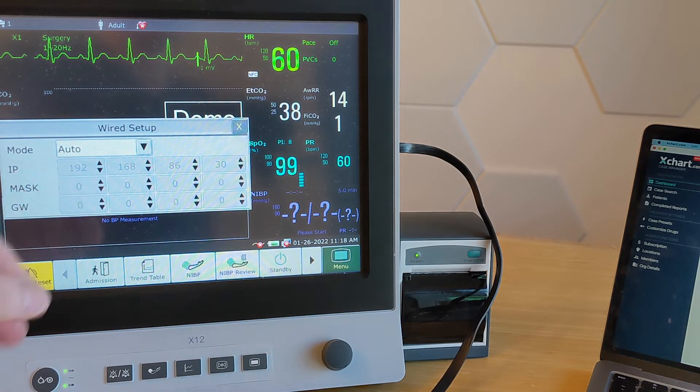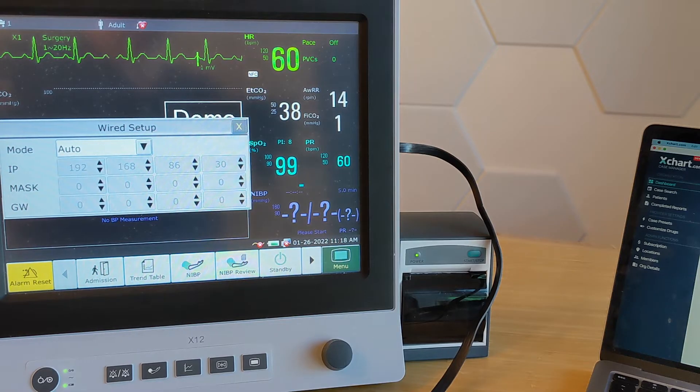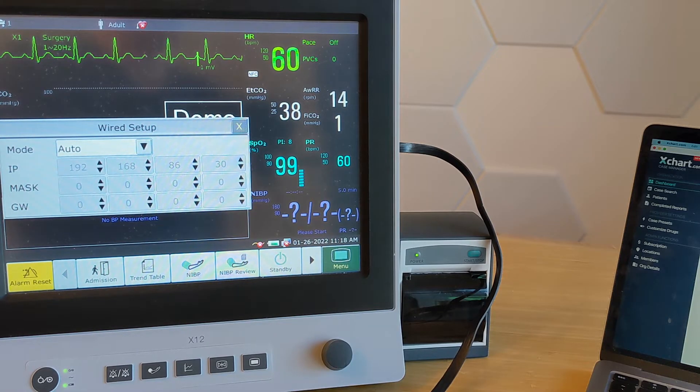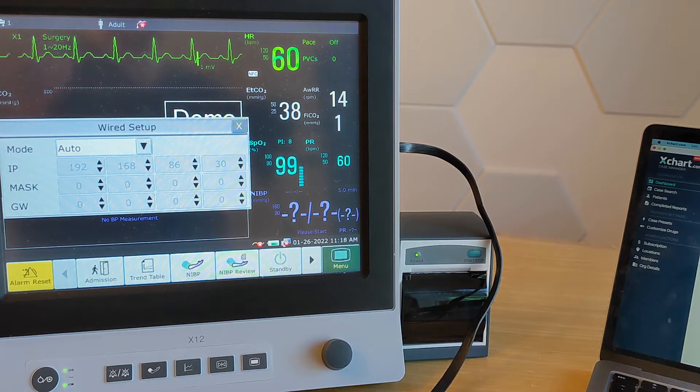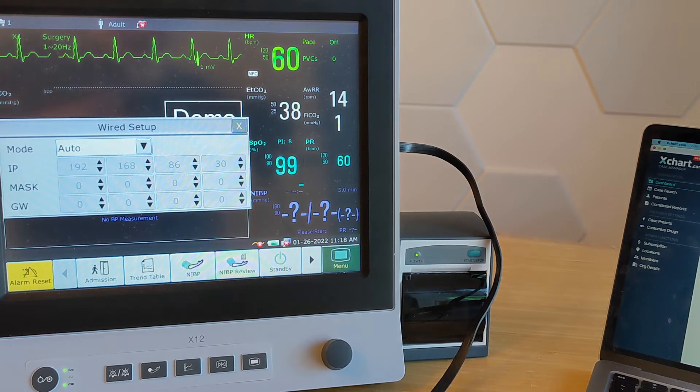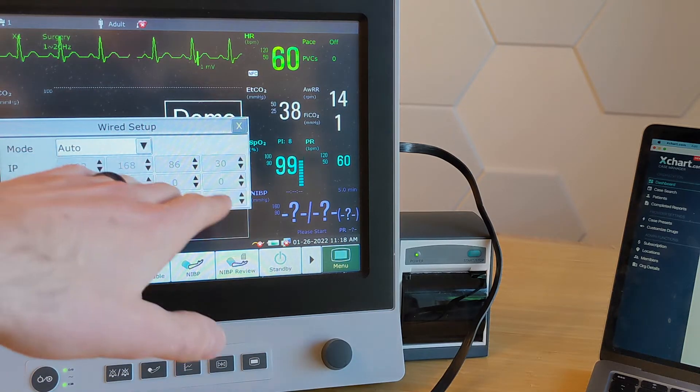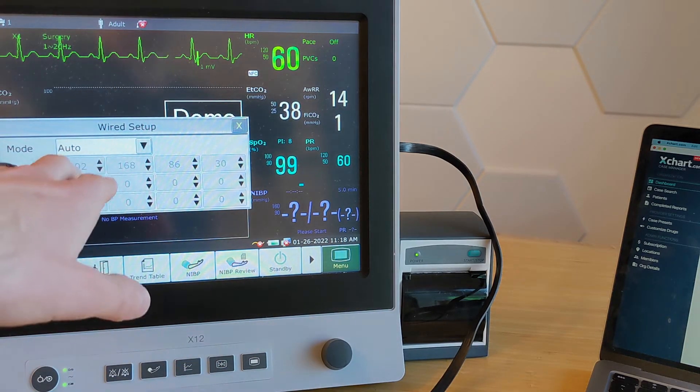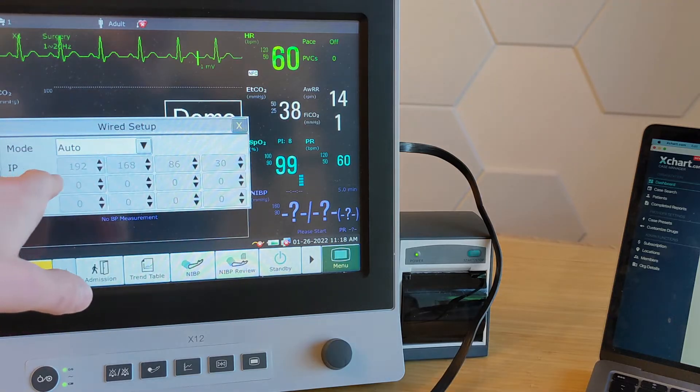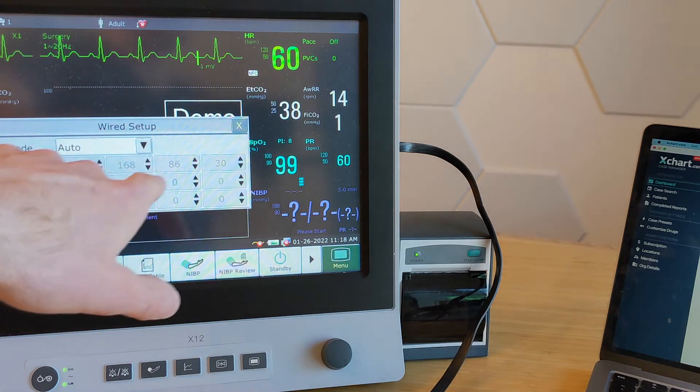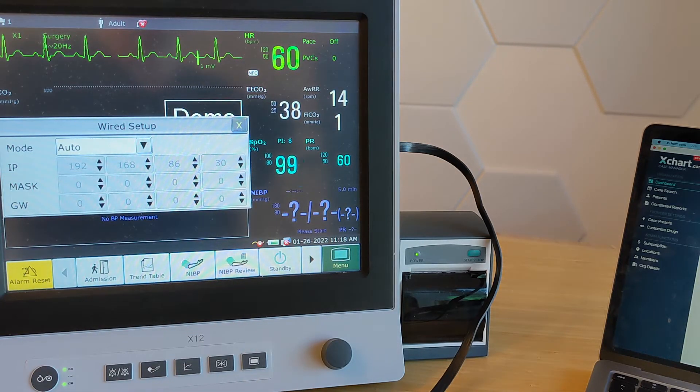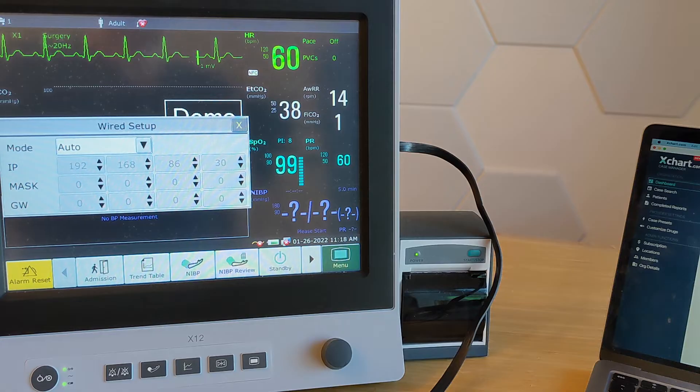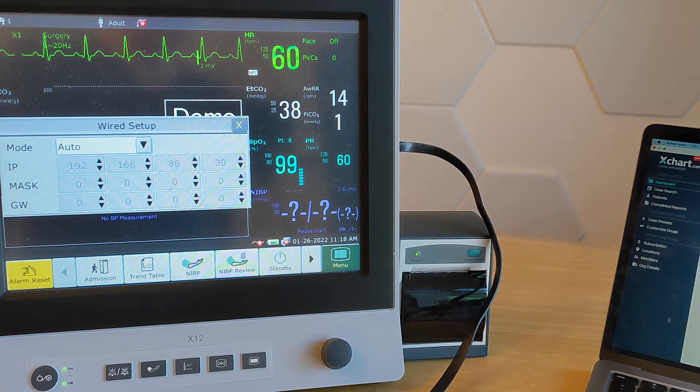whatever number is listed here is going to be the IP address that it currently has on your local network. When you set it to auto, it's going to basically find its own IP address on the network. And it's not super obvious that it actually shows it here, but once you close the screen and go back, you'll see a number here. And this is the IP address. So if you need that later on in the other steps, that's where to find that for a wired connection.